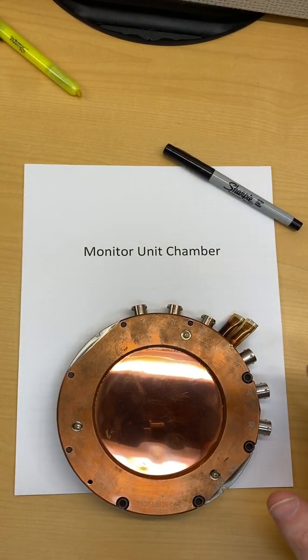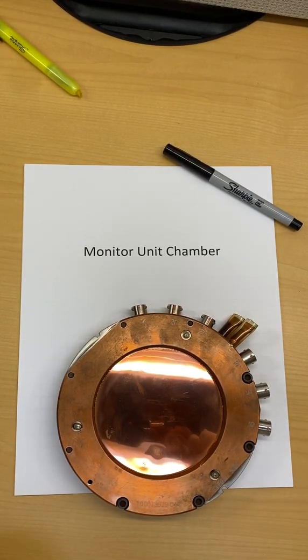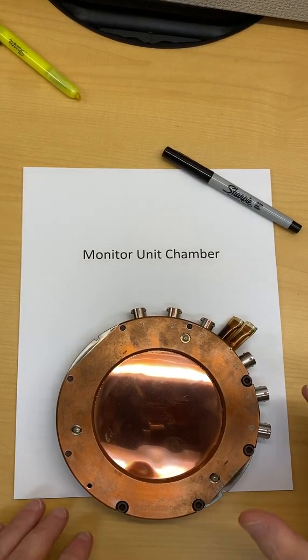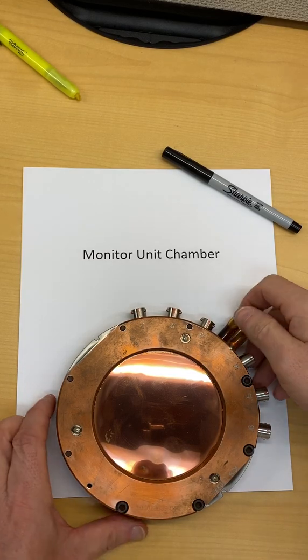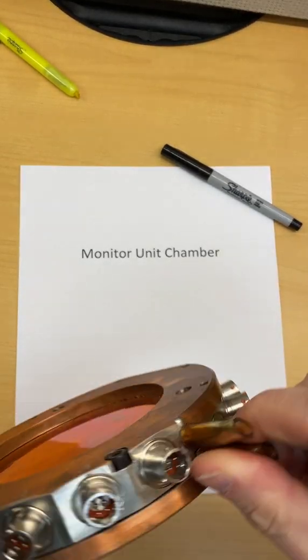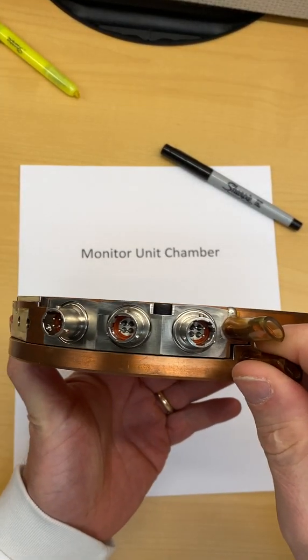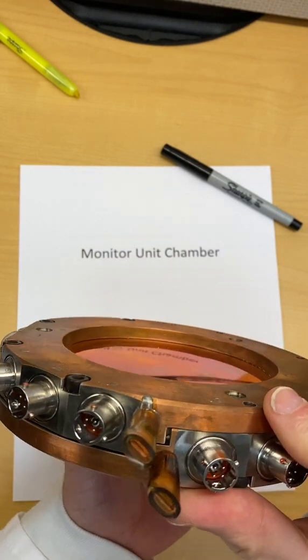Hey, check this out. We got a monitor unit chamber. Let me get my recording perfect. Okay, so this is a monitor unit chamber that came out of a linac. It's got tons of hookups.